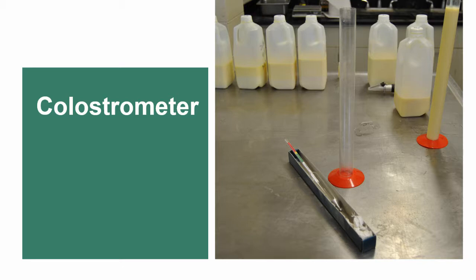In this video, Sonja Gelsinger will demonstrate how to use the colostrometer to test colostrum quality.